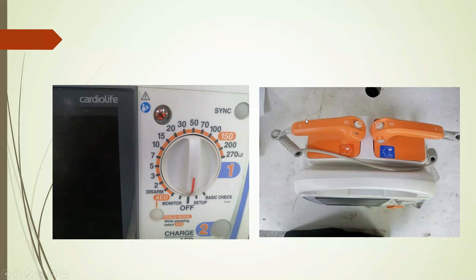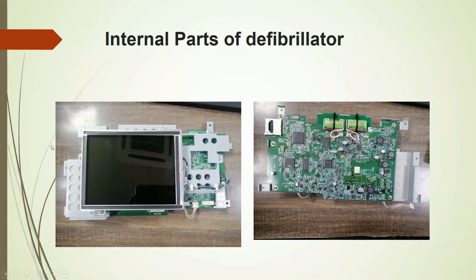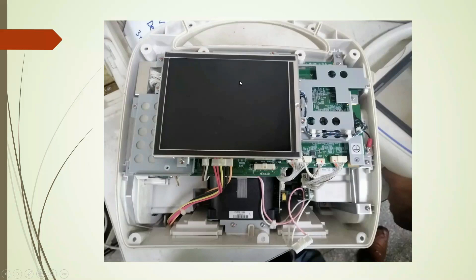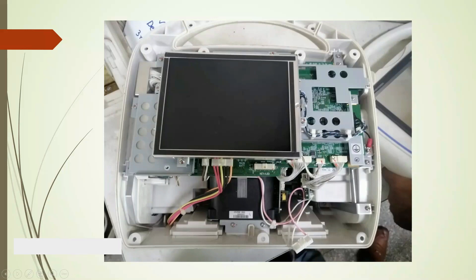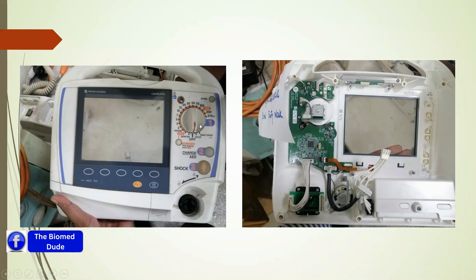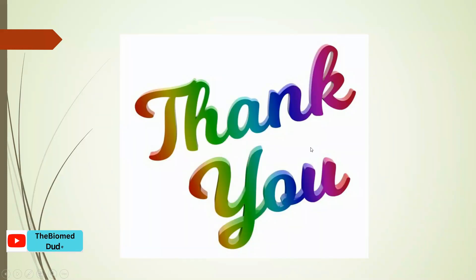Now I am talking about the internal parts of the defibrillator. Here is the main screen board and main PCB board of one defibrillator, showing the internal structure. Here is the high-voltage panel where charge and discharge to the patient occurs. On the next screen, here is the front panel of the defibrillator, the inside of the panel, the battery chamber, and the knob, speaker, and other switches.